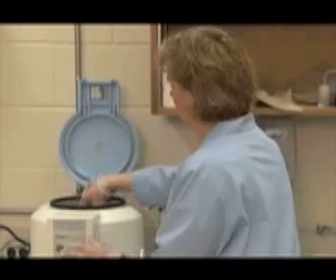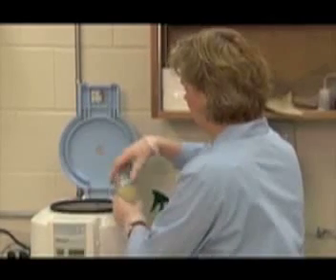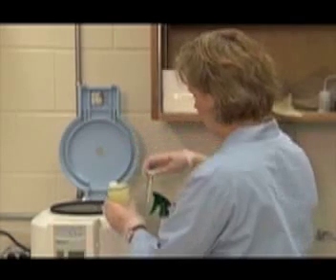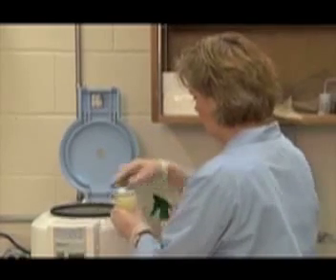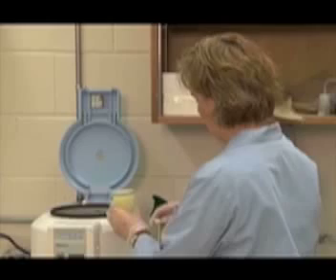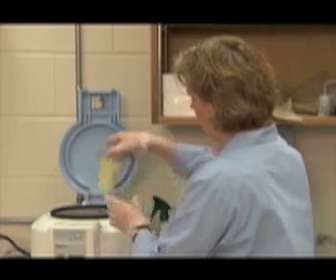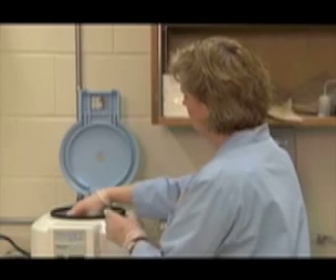When the time in the centrifuge has been completed, it is time to decant the supernatant. Remove the specimens from the centrifuge and place them in the test tube rack, being careful not to disturb the sediment. Close the lid of the centrifuge container and return them to their place.